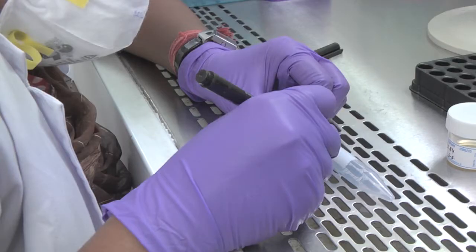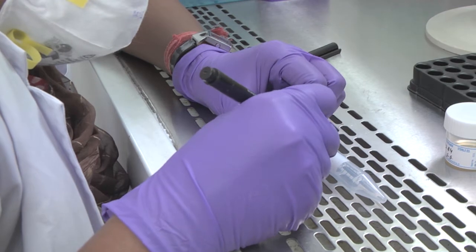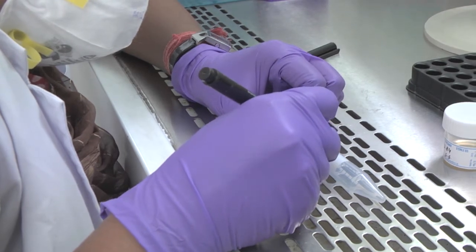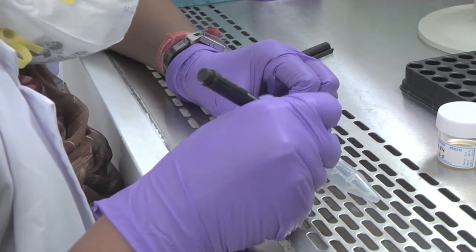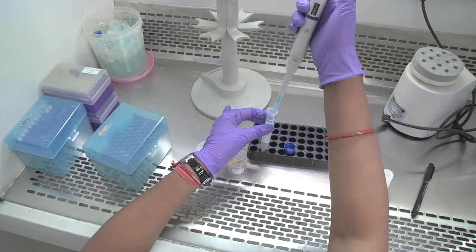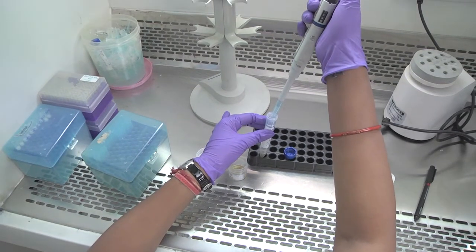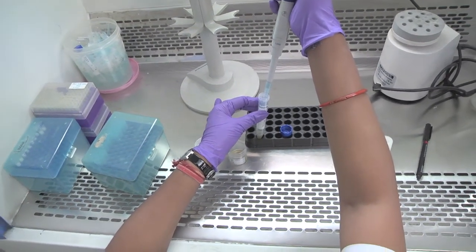Before performing the test, make sure that you wear appropriate personal protective equipment. Label a falcon tube with the patient or lab identification number. Then place the sputum sample in the tube.